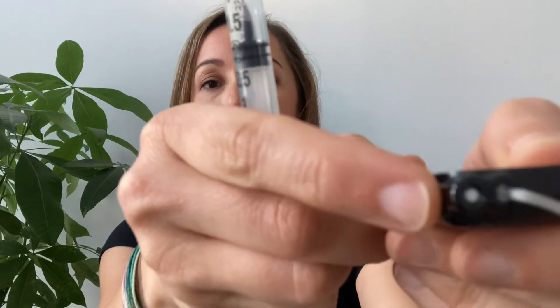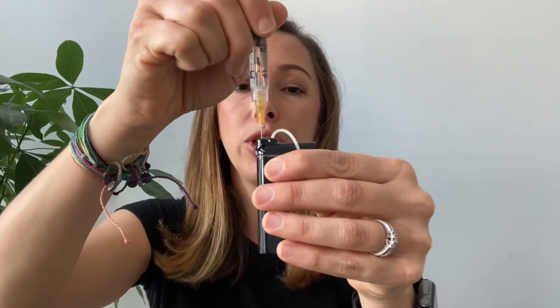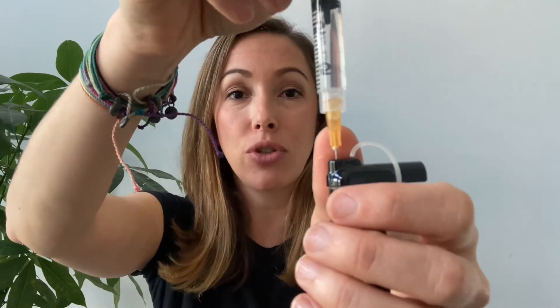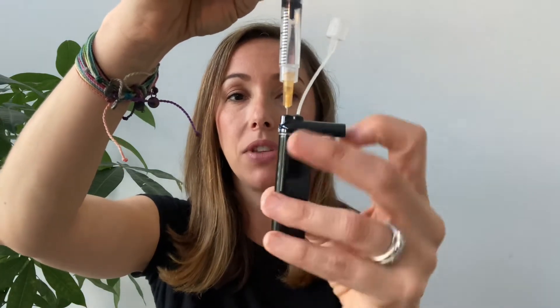Remove the vial and grab your cartridge. You'll see a small tubing, and next to the tubing there's a little white port. Insert your syringe straight into this port and push it in until you feel you hit something. The whole needle may or may not go in all the way — it doesn't have to. Now we're going to manually remove any air that might be inside the cartridge.